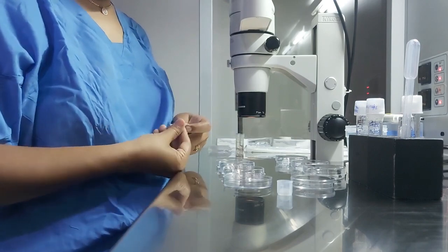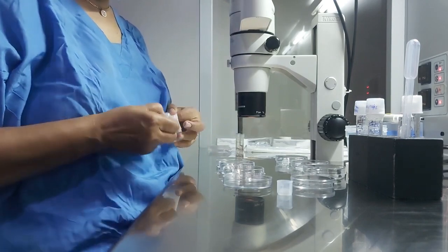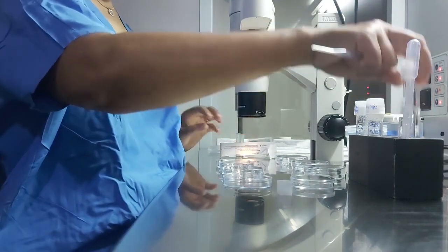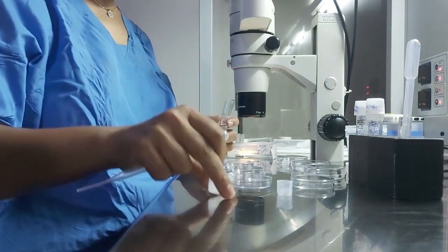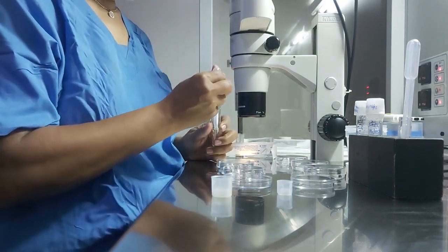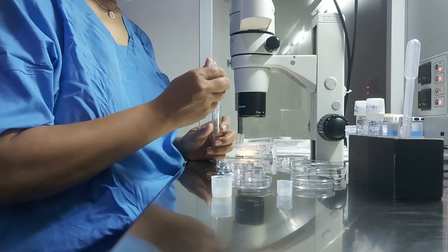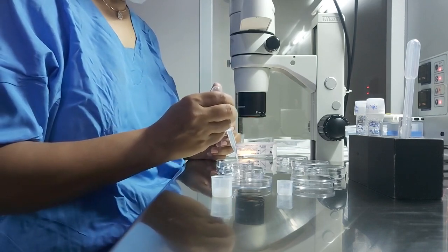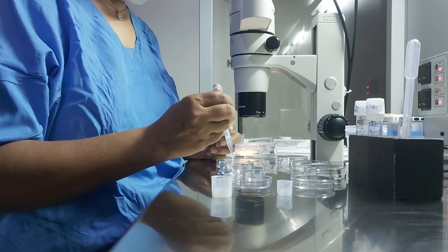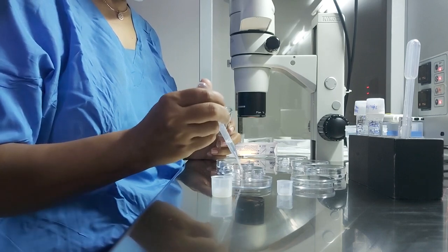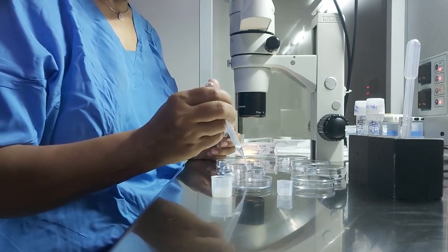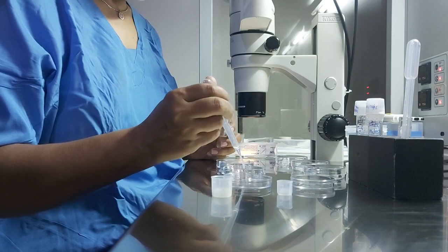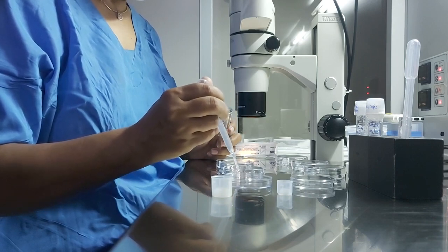The first plate was not overlaid with oil because we will use it immediately. But this plate will stay in incubator for 3 to 5 days, so we are overlaying with oil to avoid the evaporation of media and to avoid the contamination.